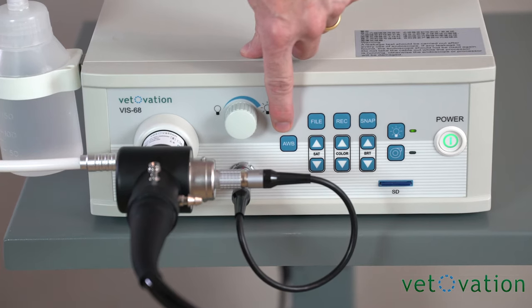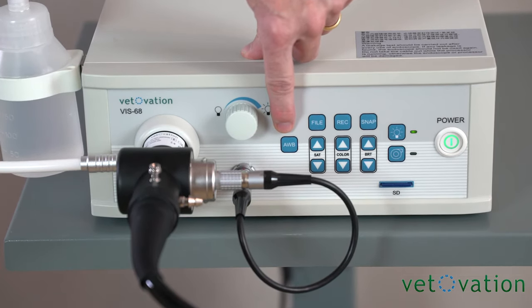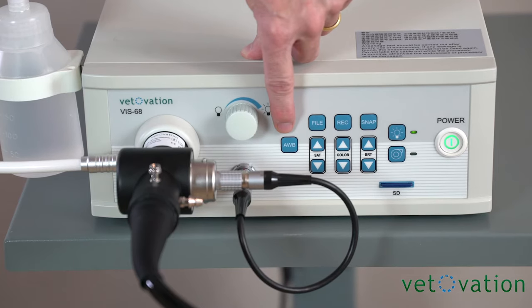Once you've turned your light on, you'll want to white balance your scope so that the system knows what is white and black and all the colors in between.